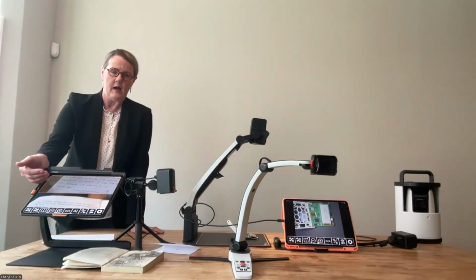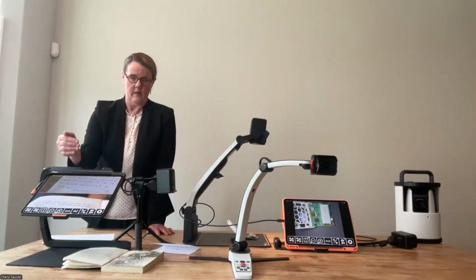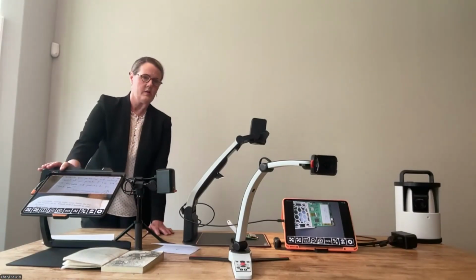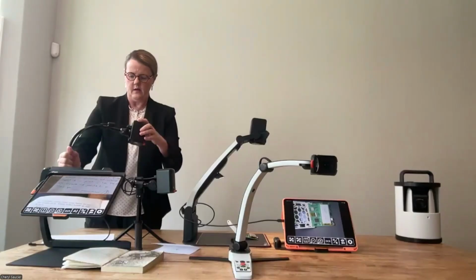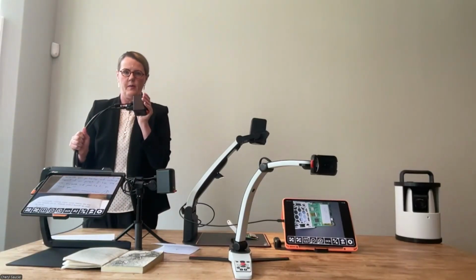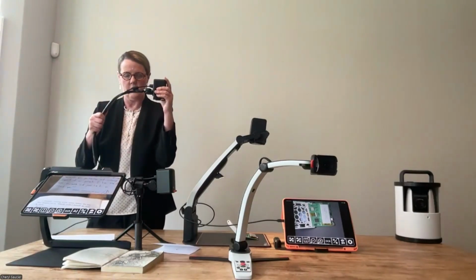We don't sell it with the iPad. The individual can bring their own iPad, or some in our reseller network bundle it and will sell one of these with an iPad bundled in. So it just depends on where you're going to source this product. And again, you can order this with, say, an external camera, where there's a hole in the base and you just pop this camera down into the hole. So it's a one and done solution. You don't have to worry about a separate camera. You can use the one that comes with the version of this device that ships with an external camera.